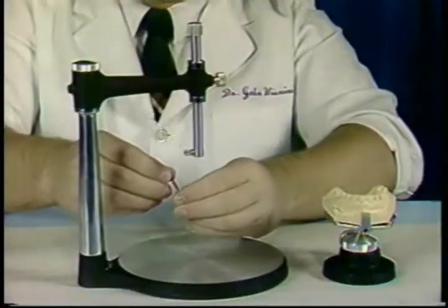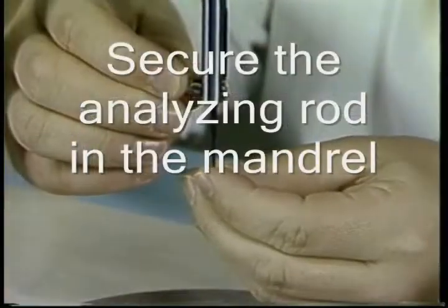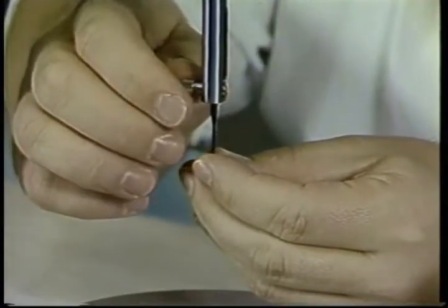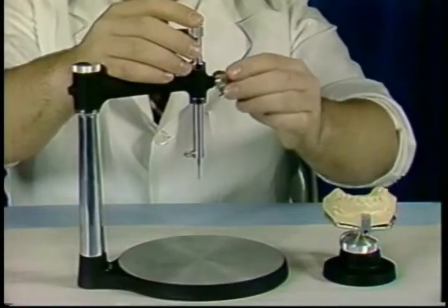How to survey the cast. To begin, secure the analyzing rod to the vertical spindle. Loosen the set screw to allow the vertical spindle to move up and down.